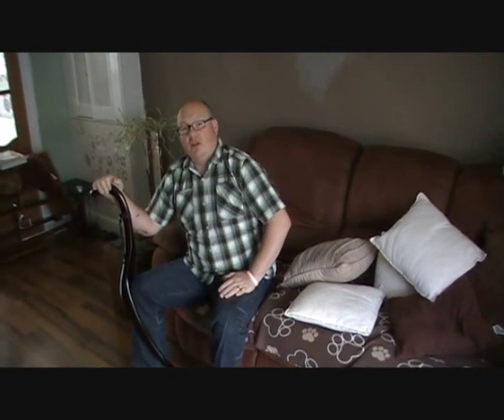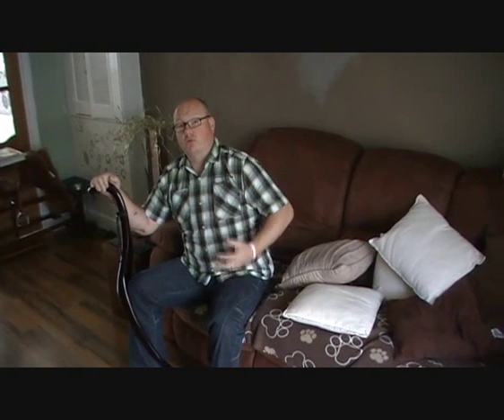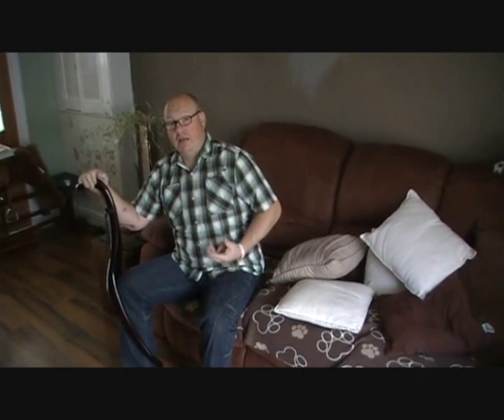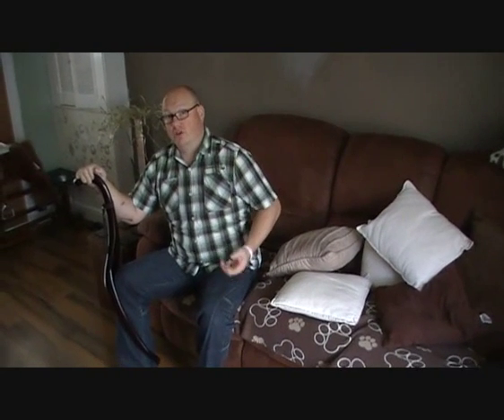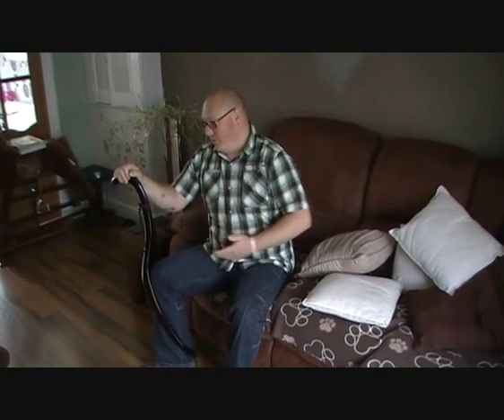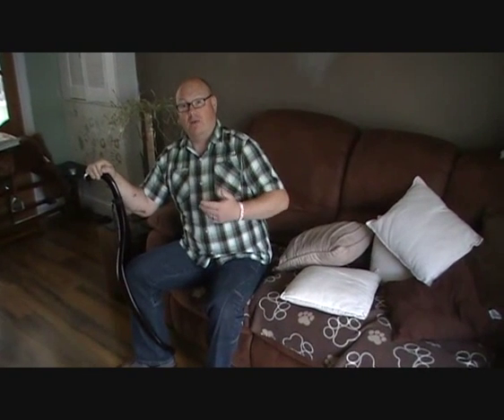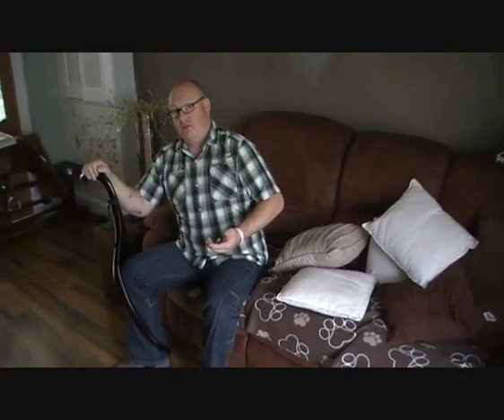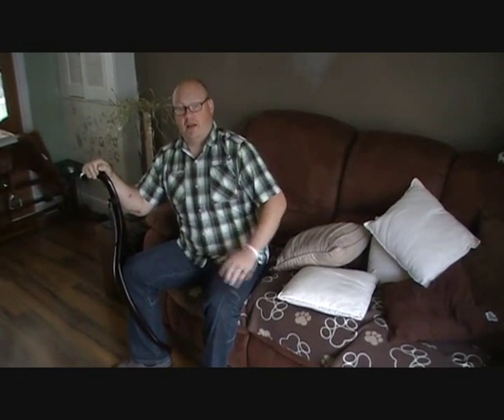When I sit myself down on a chair, especially high chairs, if I don't get down slowly — if I plop myself down — I do get increased pain pretty much straight away and struggle to get comfortable sitting down. The flow will help me get up and down more gently, more with ease, instead of just slopping down.